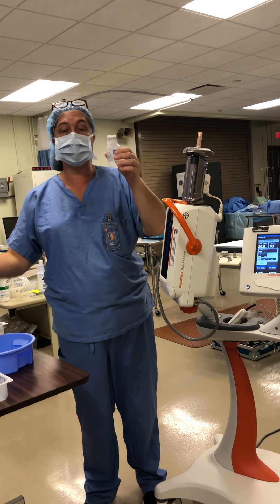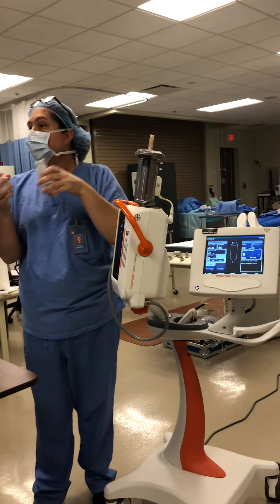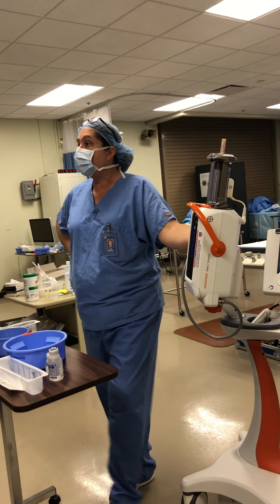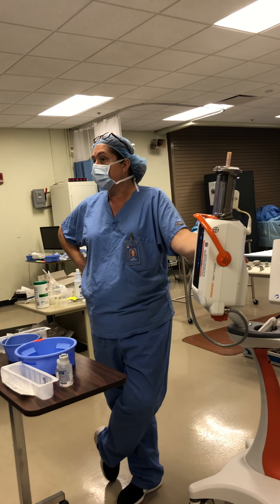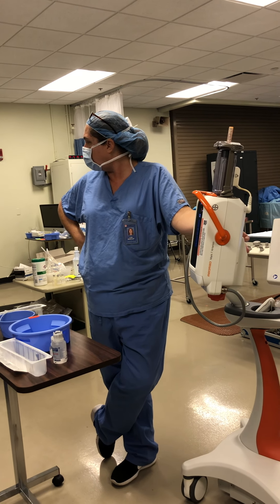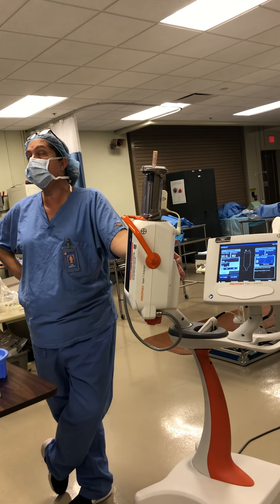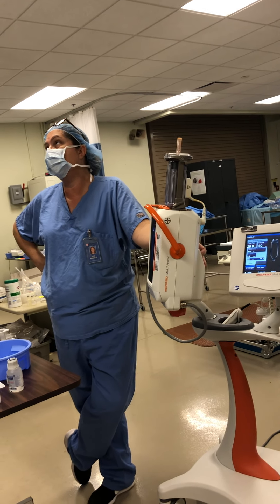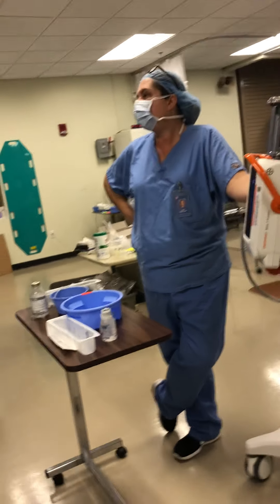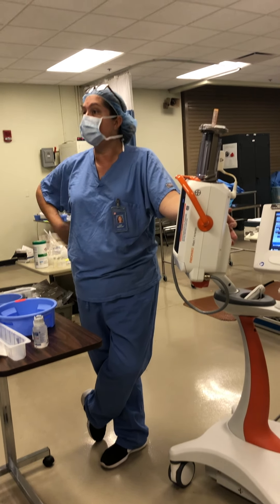I actually could put 150cc in there if I was doing multiple injections. Once we get to the leg pictures, you actually do load 150cc's in there. They do usually use anywhere from 120 to maybe 130cc's of contrast when they look from here down to the toes.